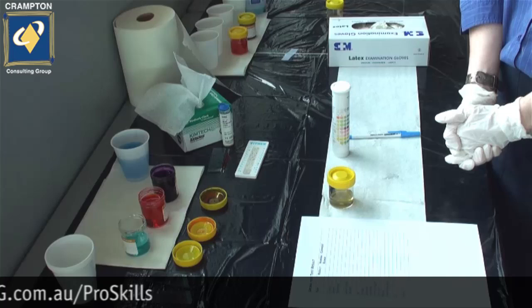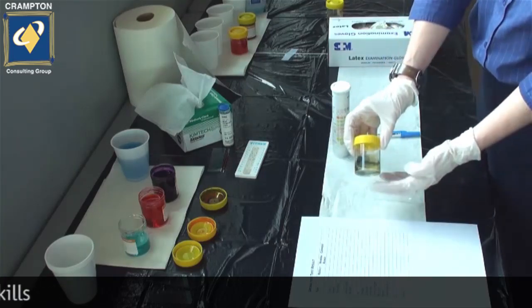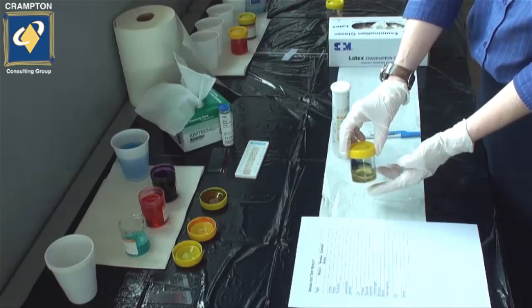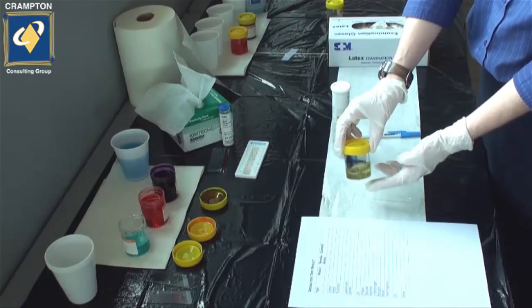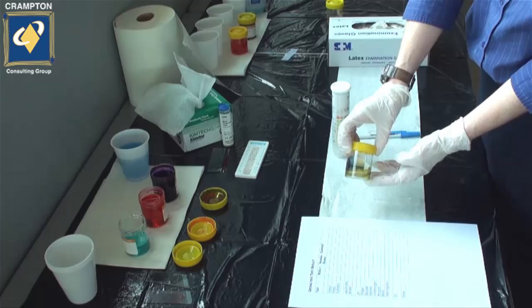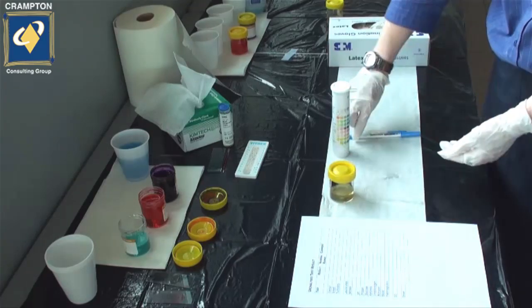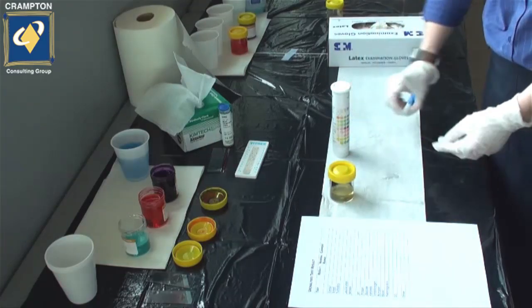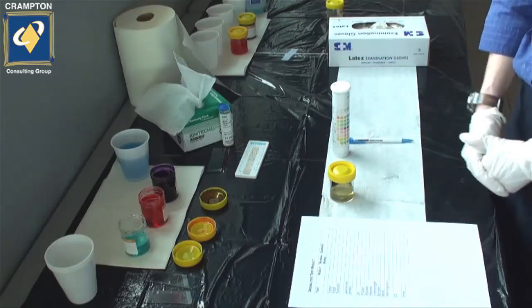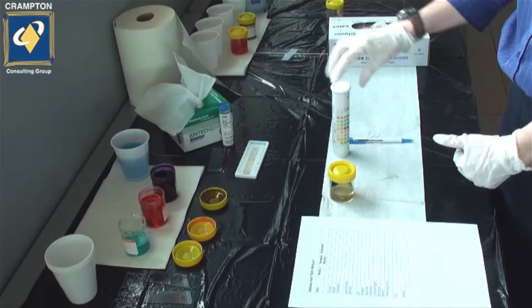We also check the turbidity of the sample. By turbidity, we mean the particles — are there any particles that are visible to the naked eye? Once we've completed the colour, smell, and turbidity tests, we start with a dipstick.